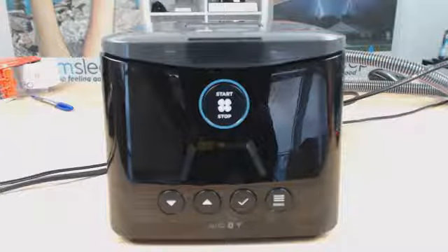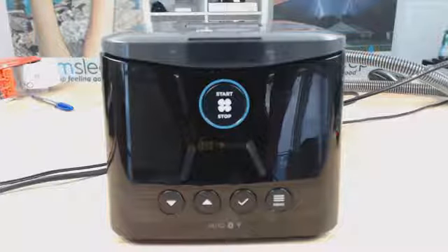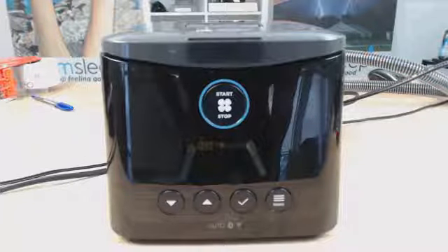I know I've had a lot of feedback from many people, especially on YouTube, who have said that it's been the difference between them being able to use the machine and not use the machine. So I'd rather have someone a bit more comfortable and using the therapy than throwing it against the wall or using it as a book stop.